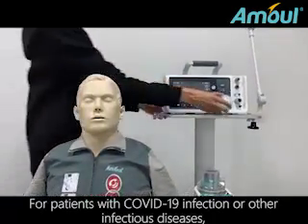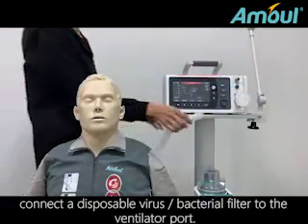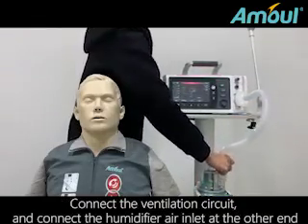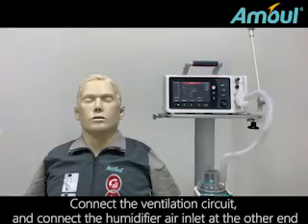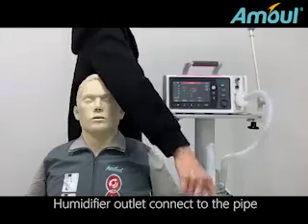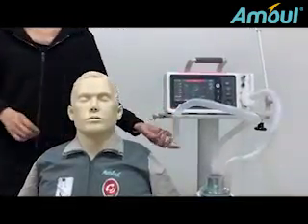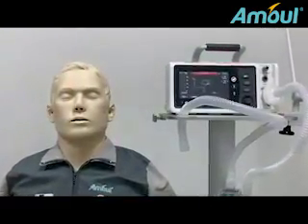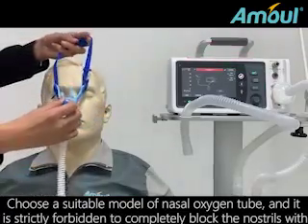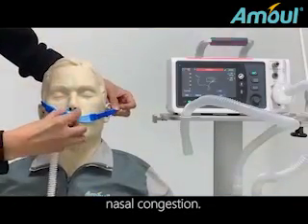For patients with COVID-19 infection or other infectious diseases, connect a disposable virus bacteria filter to the ventilator port. Connect the ventilation circuit and connect the humidifier air inlet at the other end. Connect the humidifier outlet to the pipe. Choose a suitable model of nasal oxygen tube, and it is strictly forbidden to completely block the nostrils with the nasal plug.